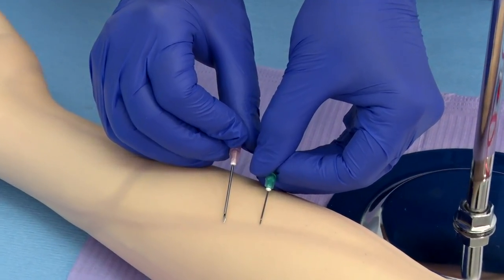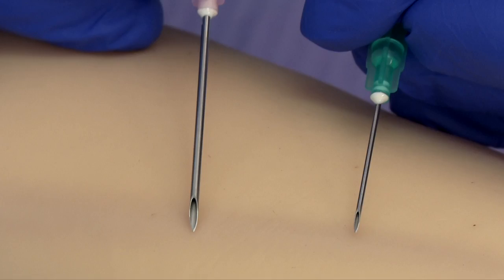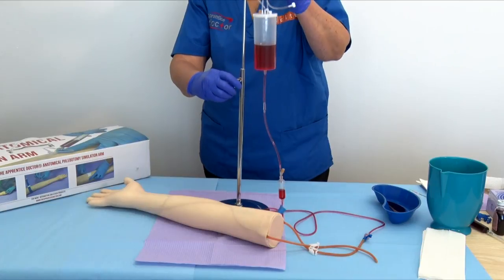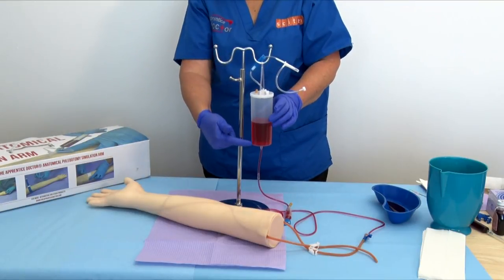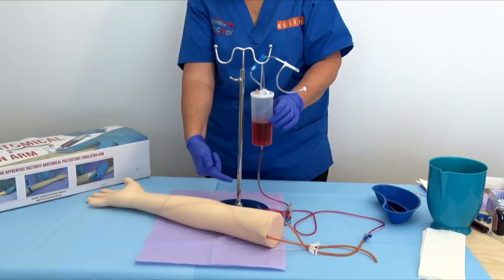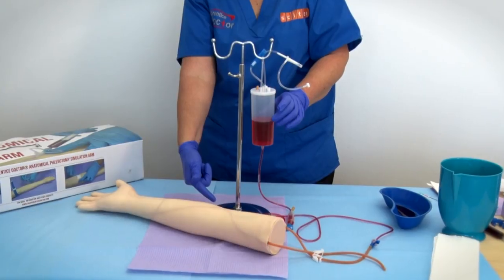Hint 2: Use smaller diameter rather than bigger diameter needles to practice. A 21G or 22G needle will be better compared to an 18G needle, for instance. Hint 3: Venous pressure is quite low and rarely exceeds 20 mmHg. To mimic this low pressure, do not put the reservoir container too high above the arm — 3 to 6 inches is quite sufficient. This will also minimize the tendency of the tubes leaking.